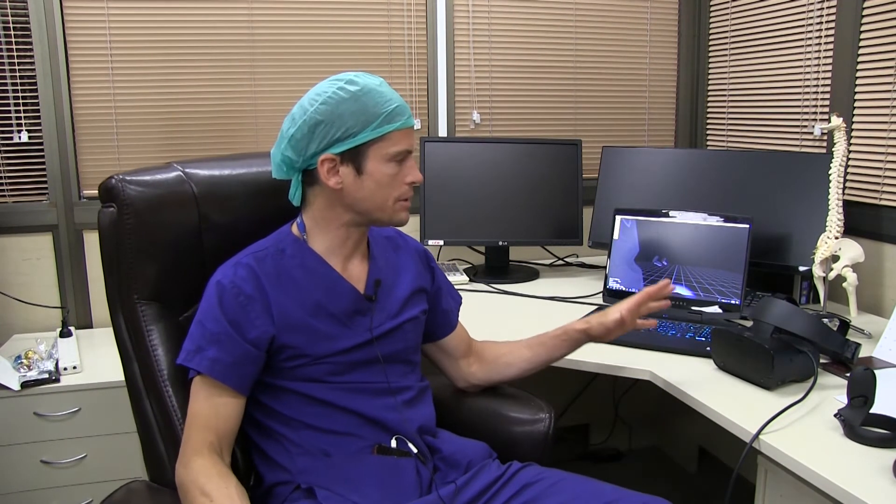As you can see, MedVR is an easy tool to use in daily practice. It is useful and I think it's a great tool for young surgeons or surgeons in general to make an accurate 3D representation of the pathology. In this spine disease we could make a very accurate 3D representation of the pathology, the spine, the alignment of the spine, and tailor our approach — the screws that were put, the hardware — and check the final results.